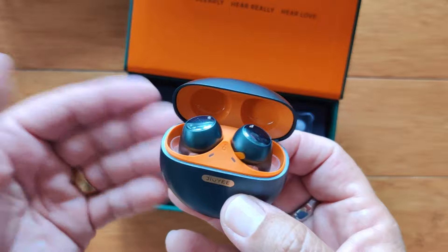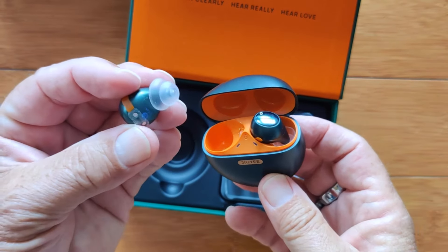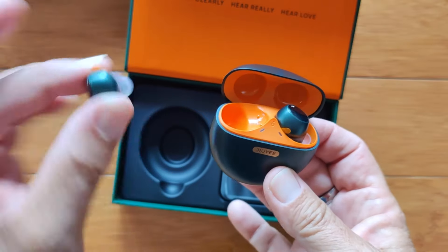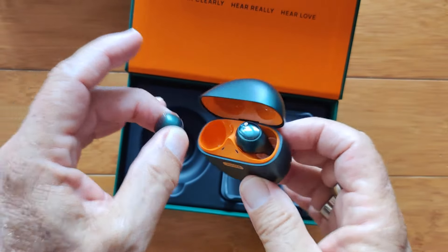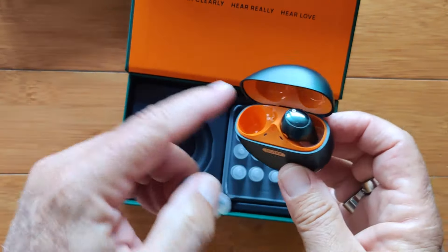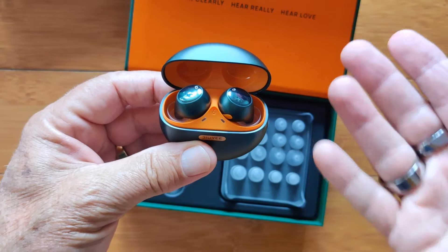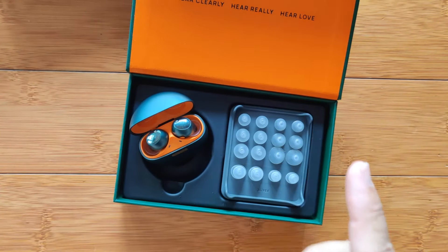You pair it to your phone and listen to great stereo — you can do all of that. And you can also use these as hearing aids. We talked before about a hearing aid set that looks like earbuds but was a hearing aid — pop it in your ear and nobody could tell. This is the same thing on the hearing aid side, with more enhancements: you can do an active hearing test and contour your sound profile directly into the device. And because it has Bluetooth, it can pair to your phone and play music, YouTube videos, or whatever you'd like.